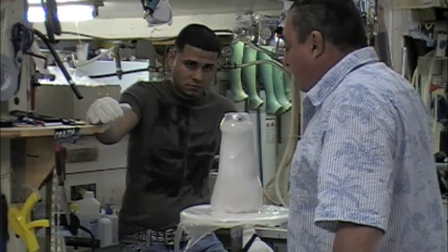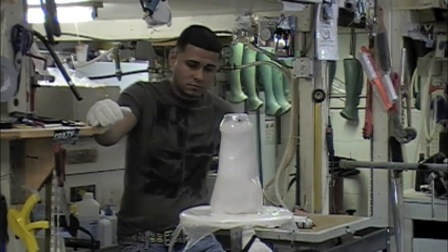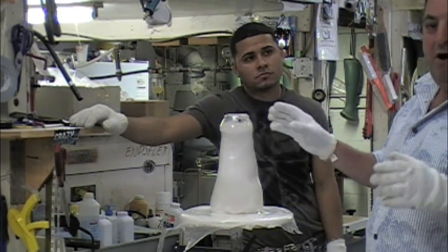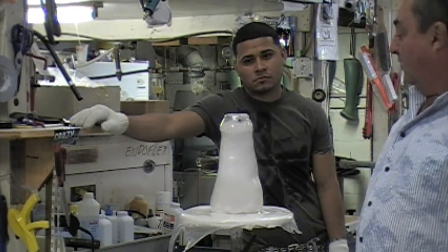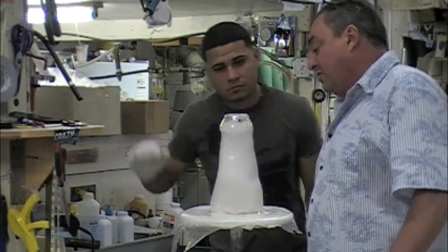The screws are aligned with the line of progression — we're good to go. When we pulled this thing it started to slip off, losing its position, and I just grabbed it with my glove and put it where it belongs. You can handle it — it's so thick that you're not going to damage the project at all.